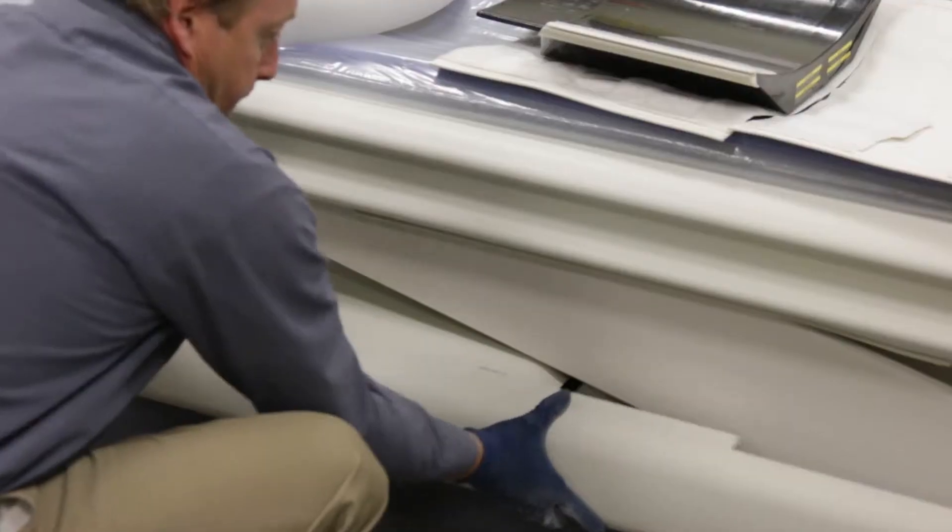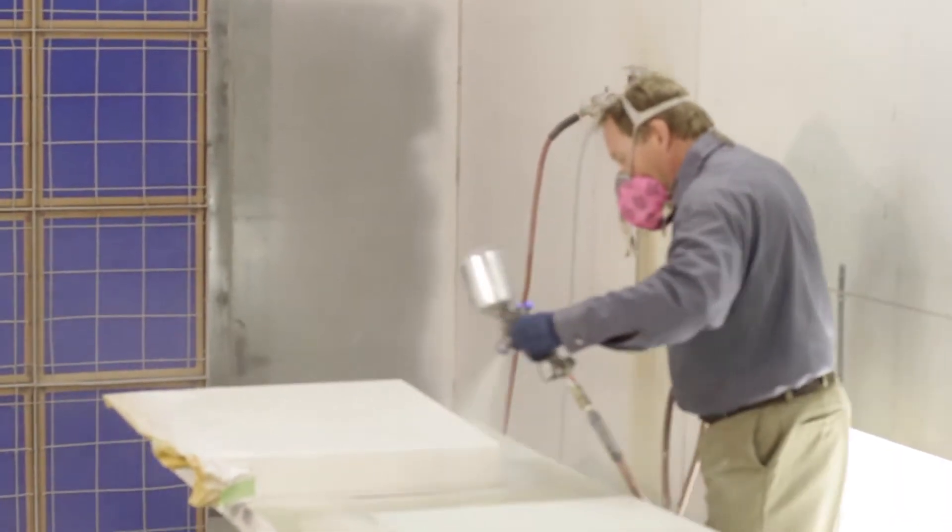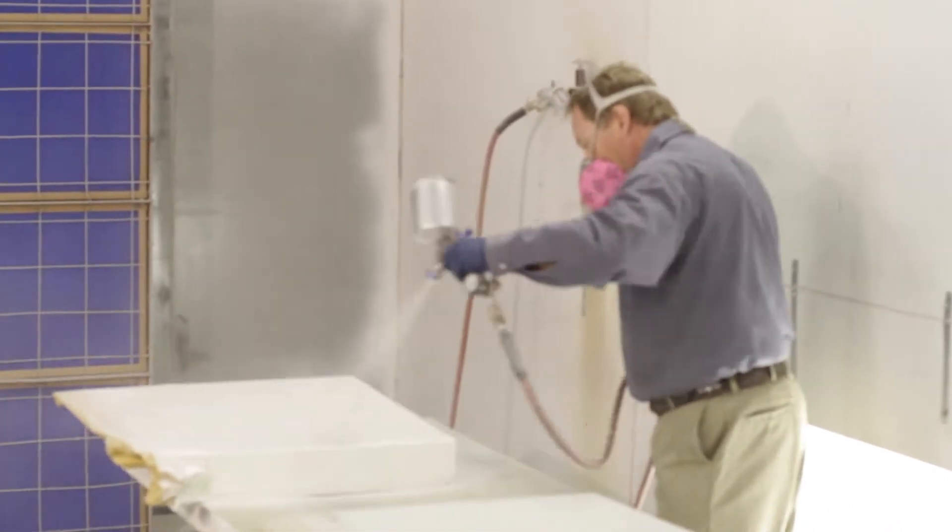The system is brought in for our paint process where it is disassembled, the body panels are sanded, and any flaws are corrected. RADSource uses a top-of-the-line industrial polyurethane paint. This paint application offers excellent scratch resistance and is oftentimes more durable than the paint application from the original manufacturer. The system will not only look like new, it will work that way as well.